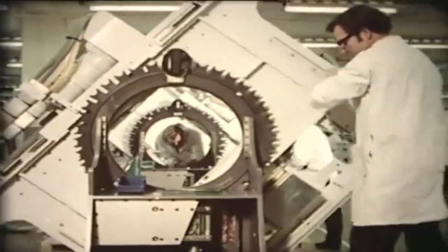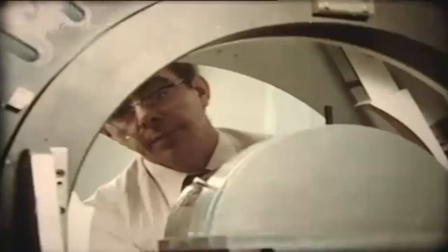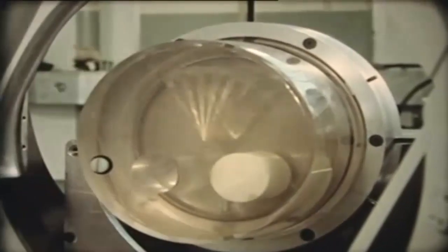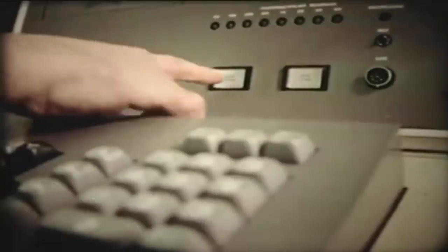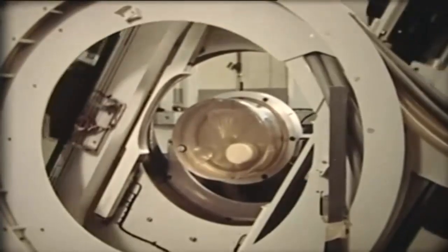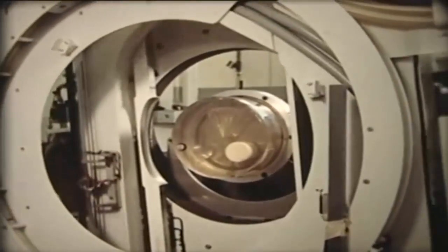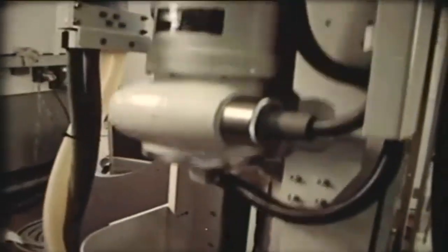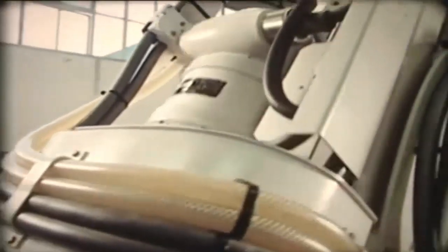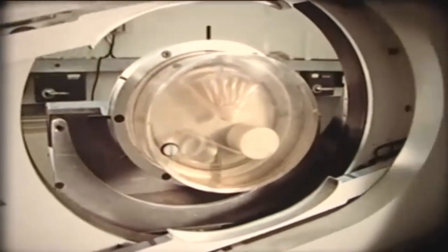Each machine is tested for eight days. A disk of plastic stands in for the future patient, simulating the full range of densities found in the human body — from the lowest, the air trapped in our lungs, to the densest, our bones. The machine is so sensitive that it will distinguish tumors from surrounding healthy tissue. A fine beam of X-rays from this tube will rotate around the patient, giving a quarter of a million readings in each picture, and able to identify the tissue density of areas no larger than a pinhead.